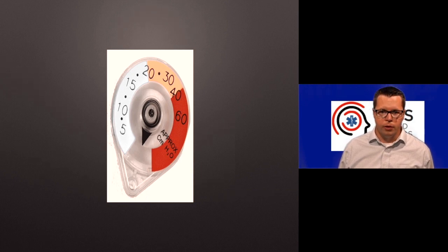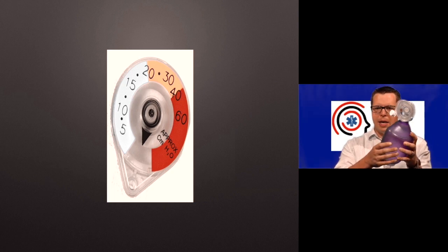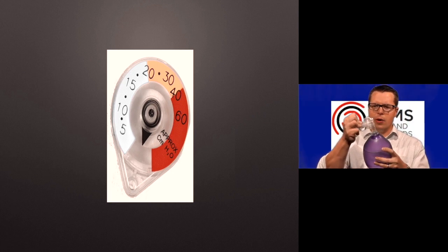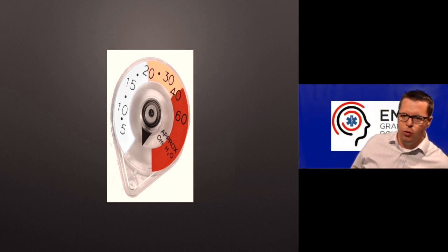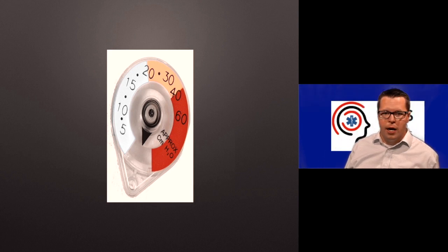So that you're not trying to deliver 60 centimeters of water to every patient that you're breathing. It is really hard. People say, oh yeah, I can tell when the bag's getting stiff. Well, you can probably tell between no resistance and essentially no flow, but the gradation in there is probably not apparent to you when you're squeezing this bag. So get a manometer so that you're doing things right. And that will also let you monitor, say, PEEP at the end, which we'll talk about in just a minute.